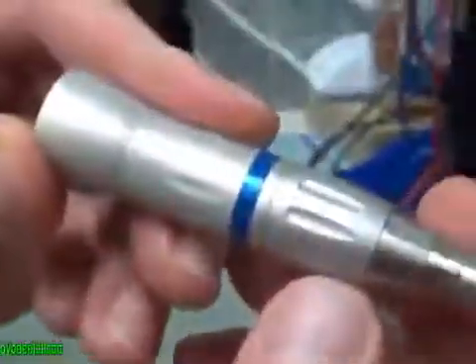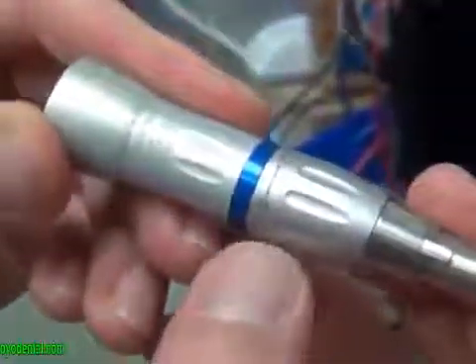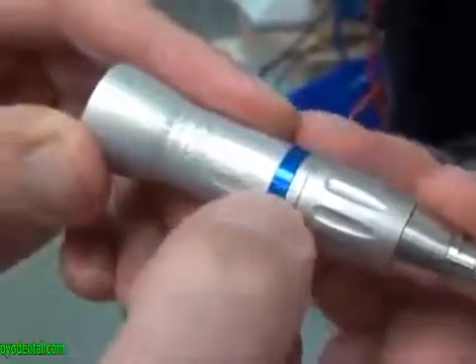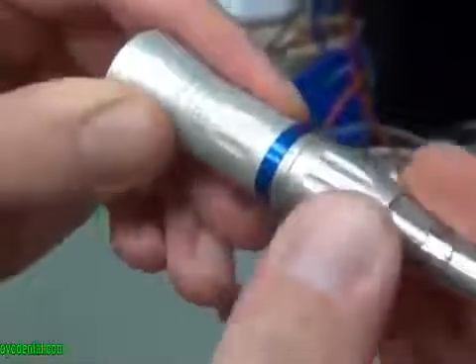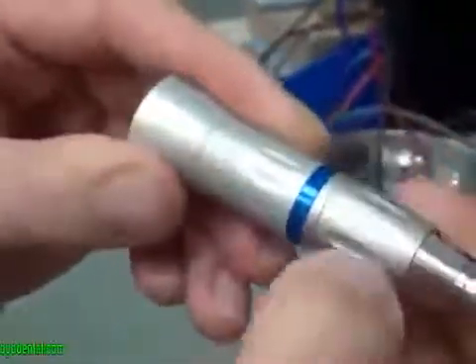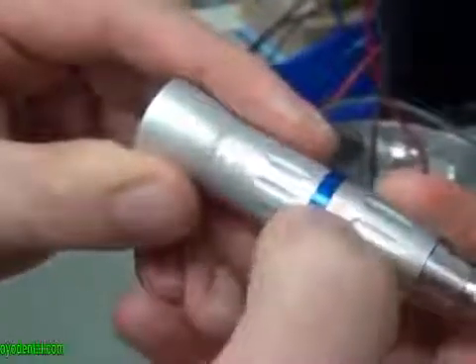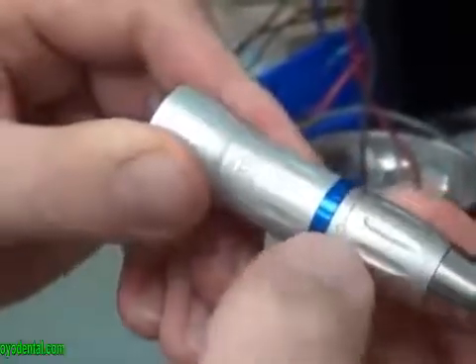The first thing that I want to show is here on this diagram, this is the neutral position when these two lines are matched up. This is the lock position. Up here you'll see that's the lock symbol and that is the open symbol.